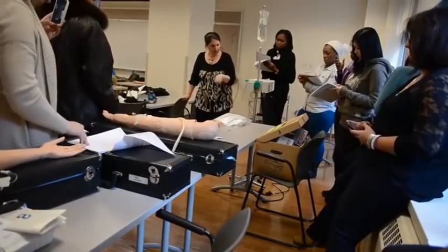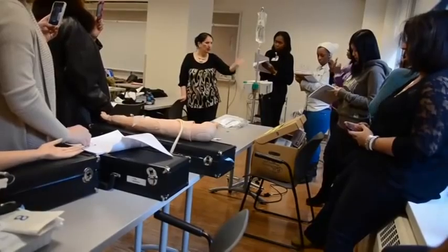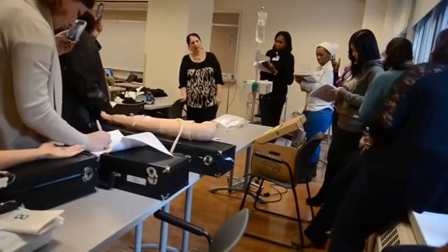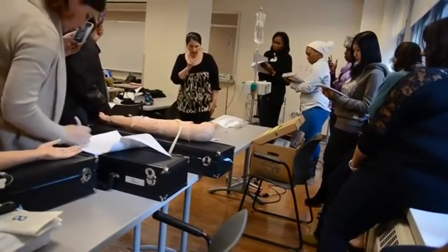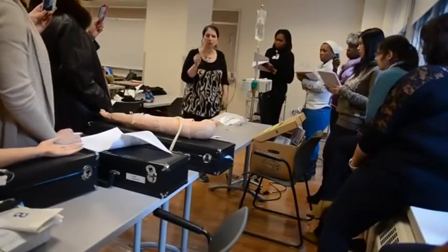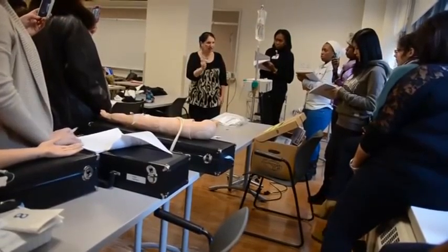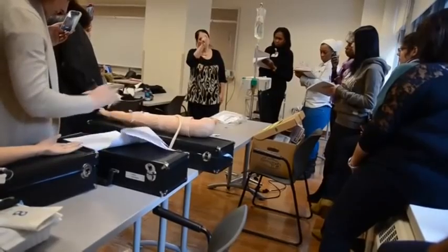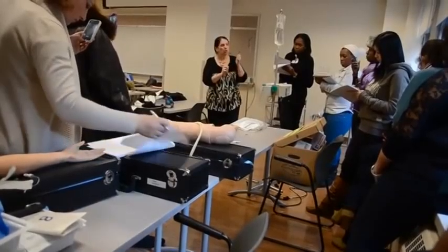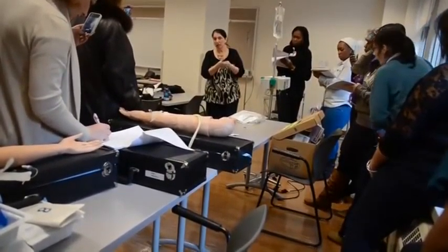For number three, I walk in and find this is on — there's 100cc's an hour, D5W, looks like about 600 in the bag, and I have to give an antibiotic. For number three and four, the IV would work without the hook, but we want you to take it to get into the practice of always keeping your antibiotic higher. But your IV would run without it.